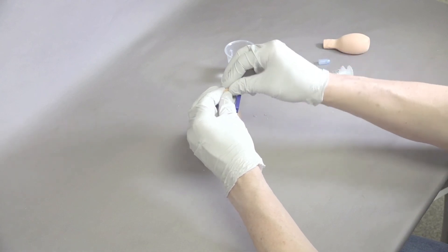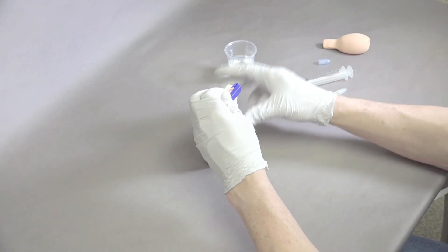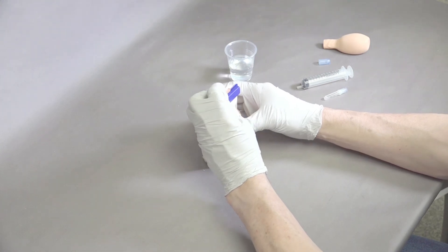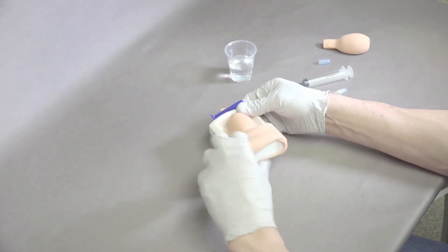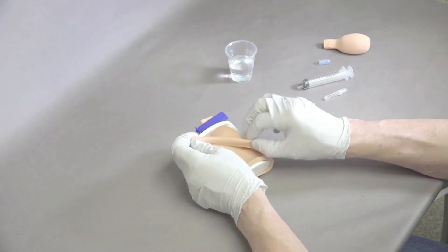Put the clamp around, get it close to closing, squeeze out the extra air, and now we've got a very full bladder that we can put the sleeve back over.